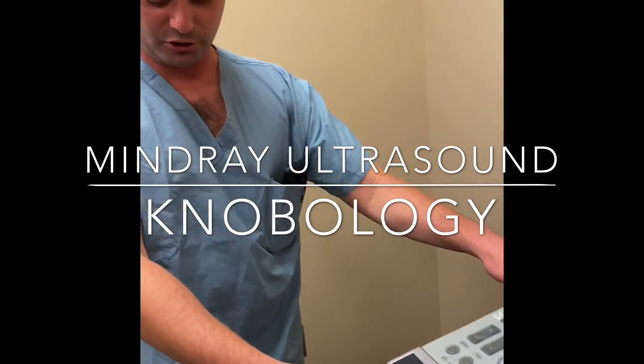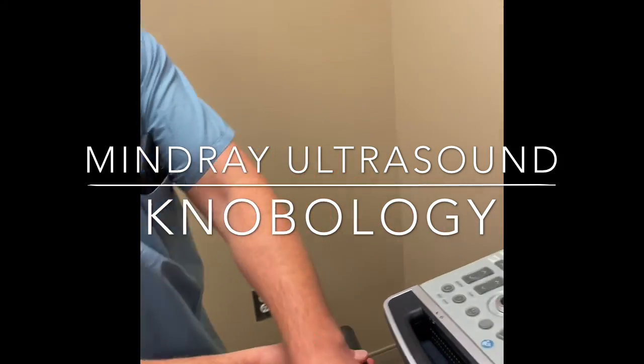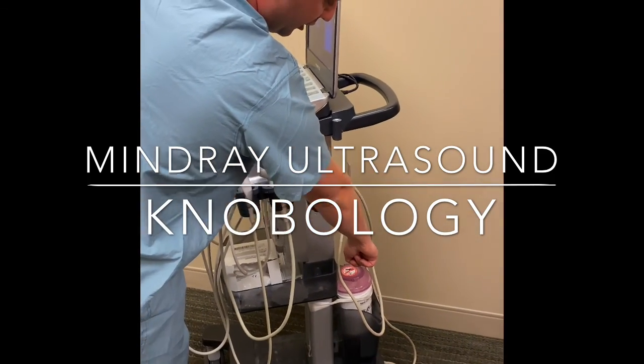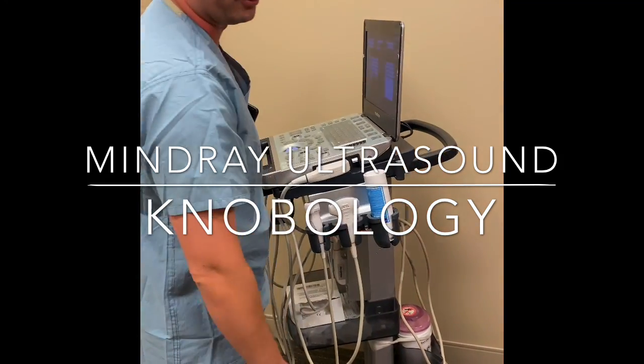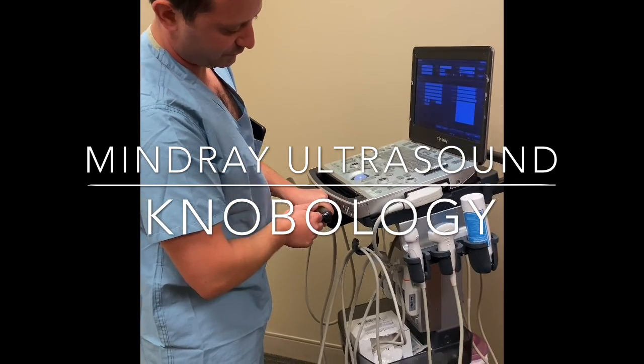Now, a few general reminders with using the machine. First, we have wipes on the back of the machine that you can use to clean the probes. Currently, we have pink top wipes. In the past, we had gray top wipes. Whichever wipes are on the machine are the only ones that are safe to use with the machine. If there's any question, please feel free to contact me.